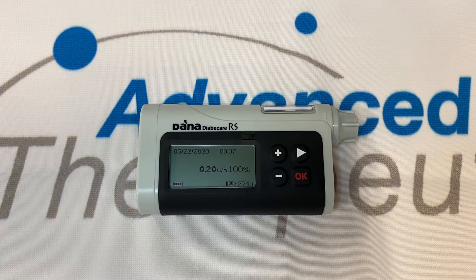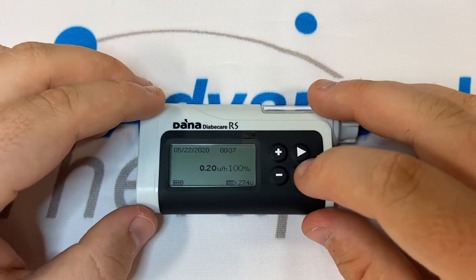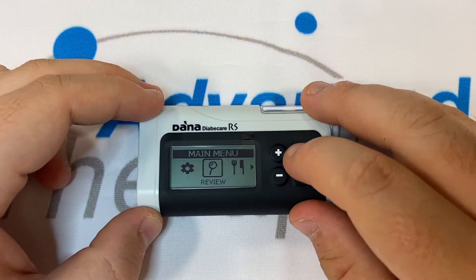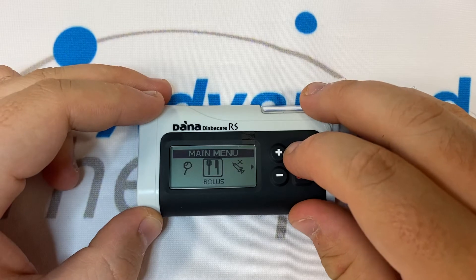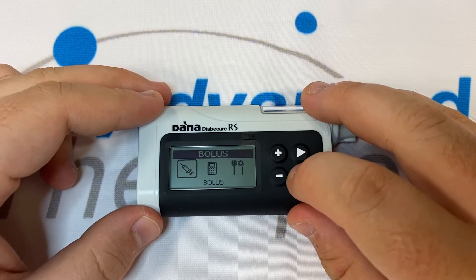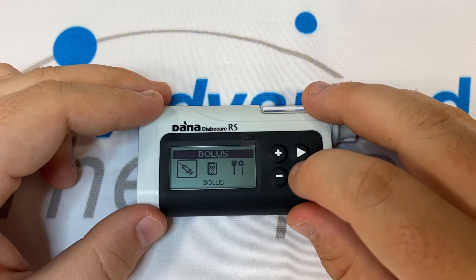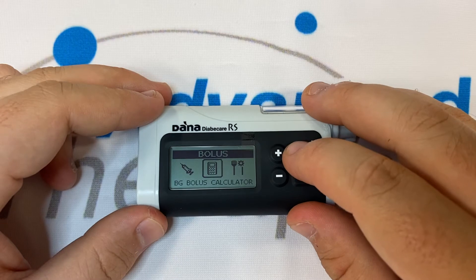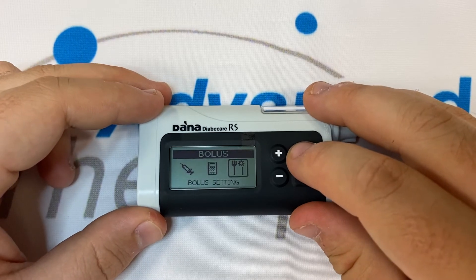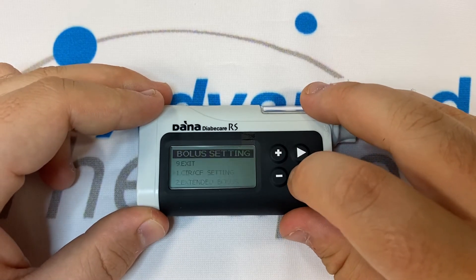Programming the bolus settings of Adana RS. Press OK to head into the main menu and right once to reach bolus. Inside the bolus submenu we have bolus, BG bolus calculator and bolus settings. Press OK on bolus settings.